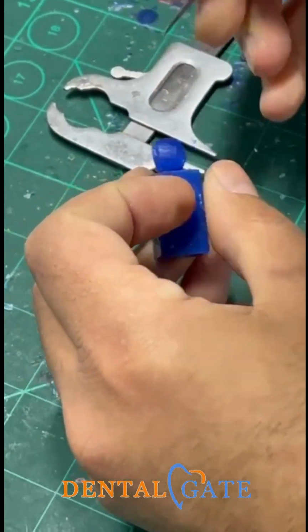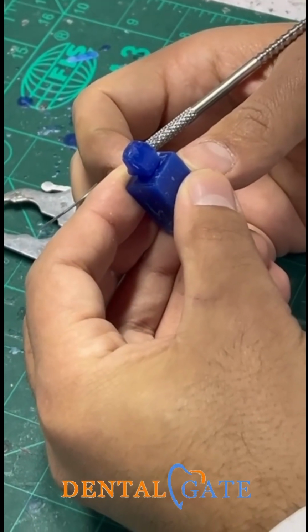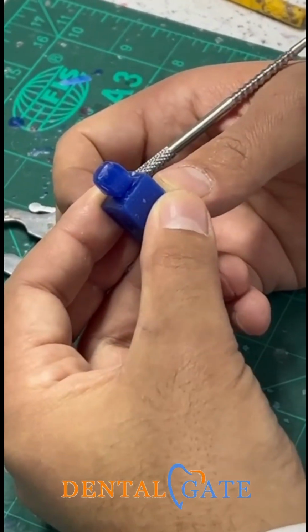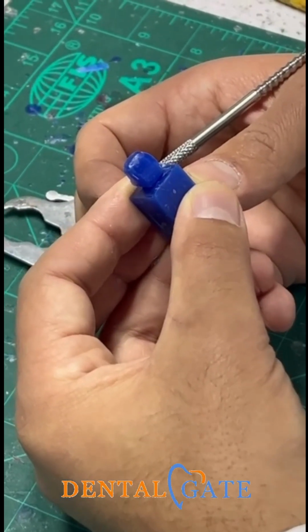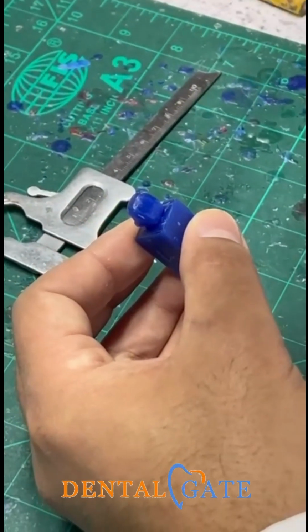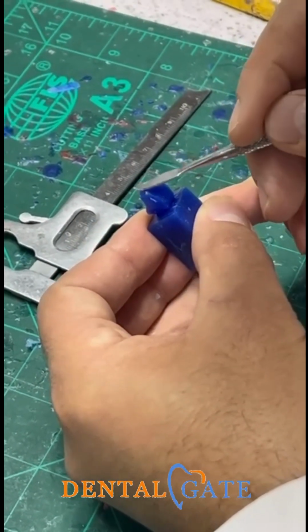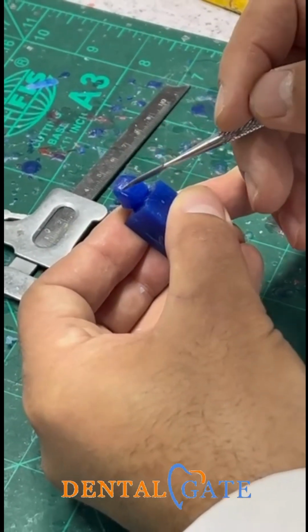So this will be called the outline of the lateral. This is a very essential stage to assign a proper measurement, a proper proportion, okay, to the shape of the central. We don't need a particular measurement. We need the proportion of the lateral incisor. And after that, we will assign the shape of the lateral. You can see within the outline, there is no final shape of the lateral. But you can see we had a severe roundation from the distal. We had an obtuse angle or roundation at the mesial. You can see we had a slightly convex here.